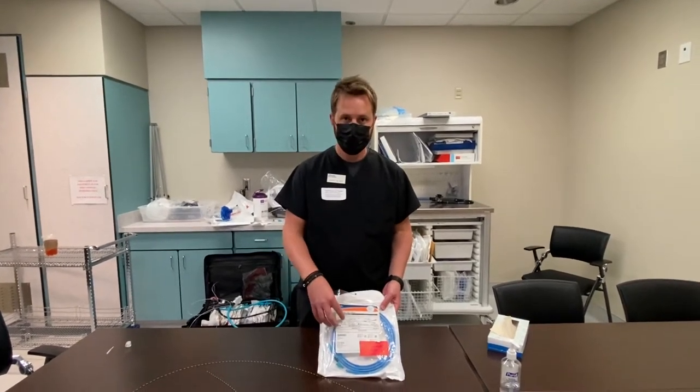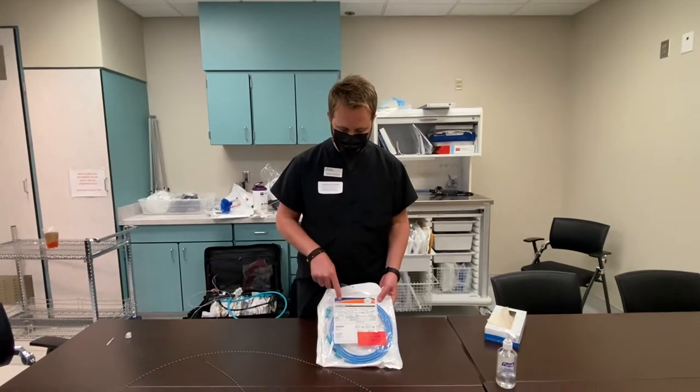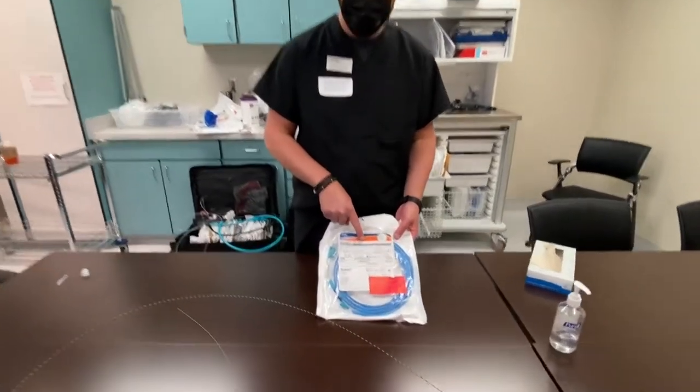So today we're going to talk about the extraction balloons or the sweeping balloons. This is an Extractor Pro RXS.